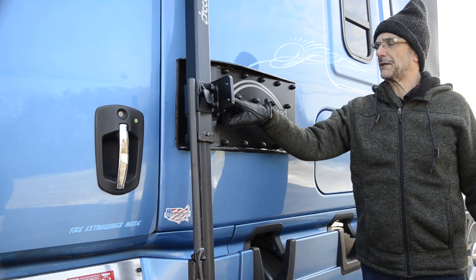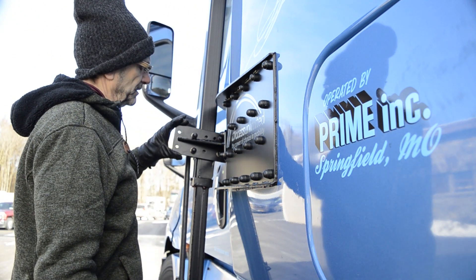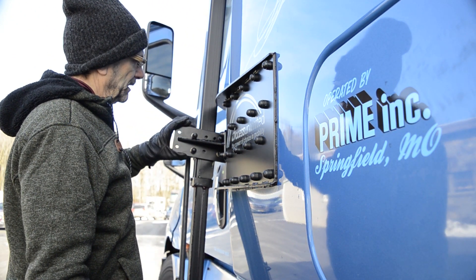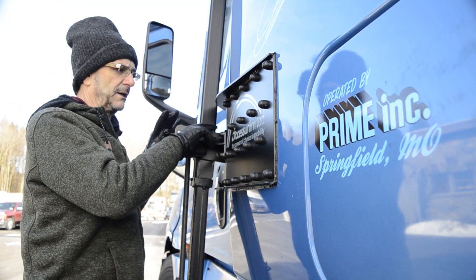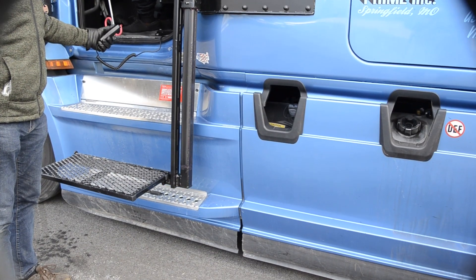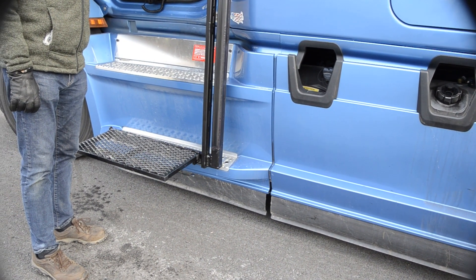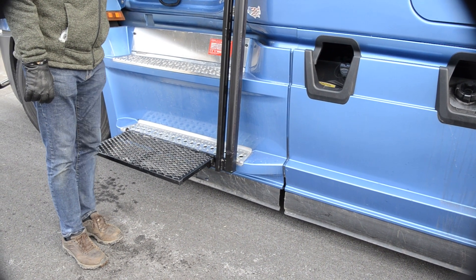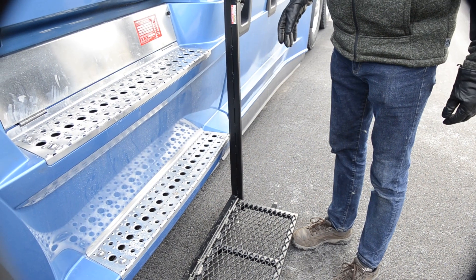These mounts are all custom manufactured right here in our facility. We have different models and styles so you can mix and match to get the right angles. You'll notice that the unit misses the step entirely, so we don't require any modification whatsoever to the vehicle. The step here goes up and down, and we'll show you how that works.